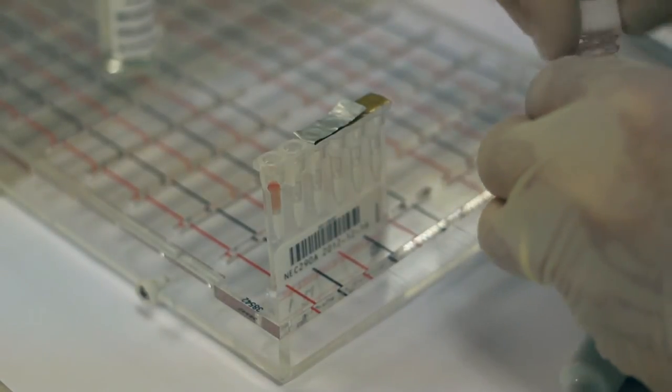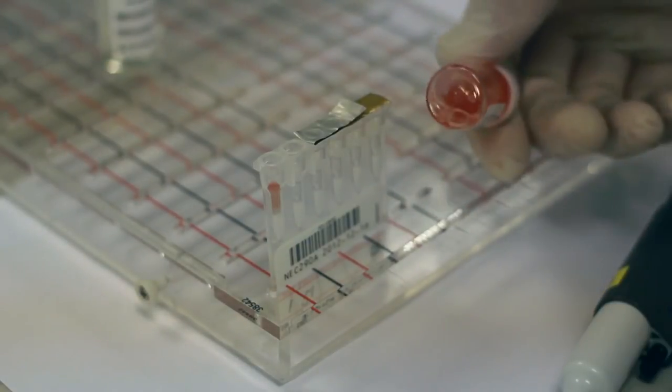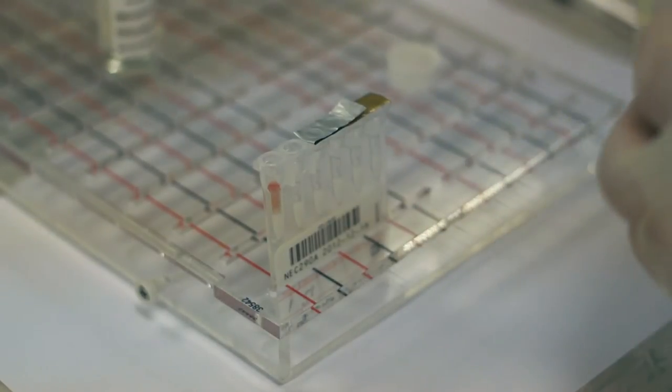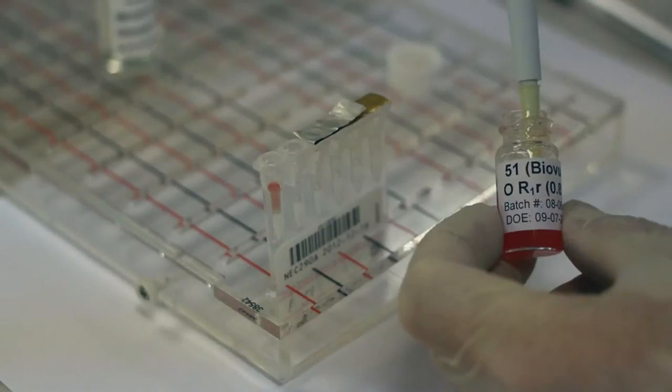The same process is repeated for the second sample. Once again, the container is shaken to re-suspend the cells. The cells from the second sample are added to the second microtube.